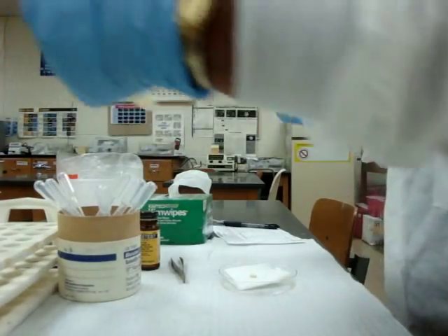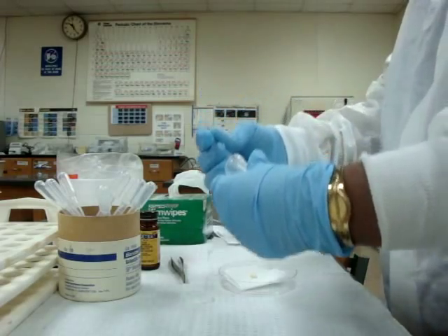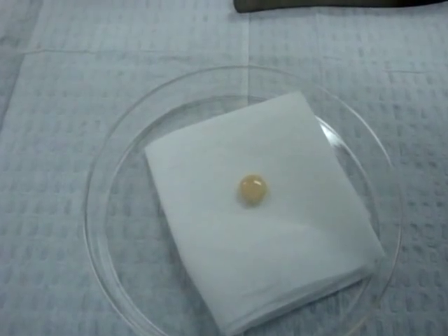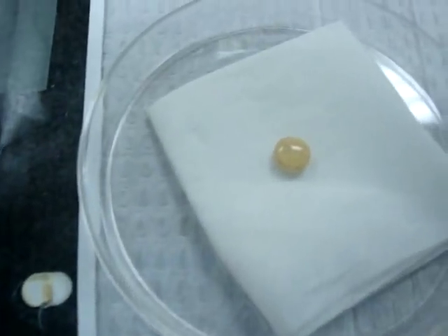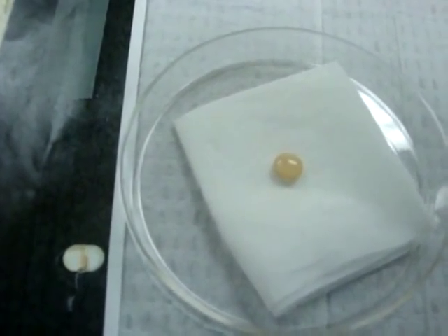Then I am going to add a drop of urine onto the Acetest tablet. Try to add a drop carefully and slowly. After 30 seconds, I compare the color change with the provided color chart. You can see the tablet color remains unchanged, so I can report my sample as negative for the Acetest.